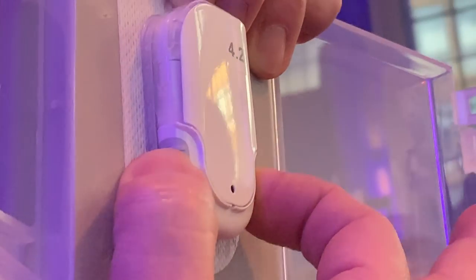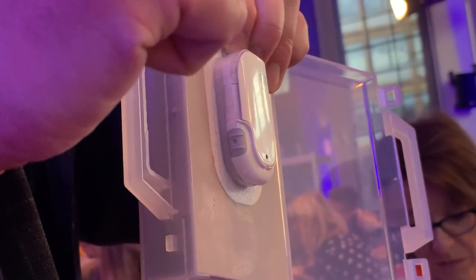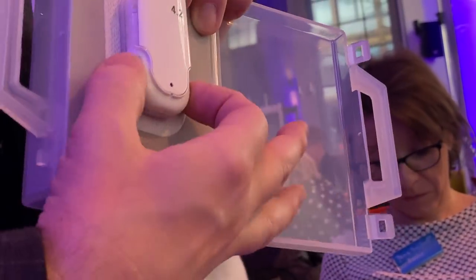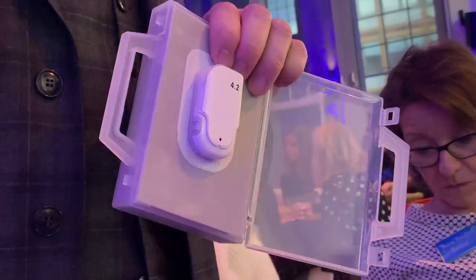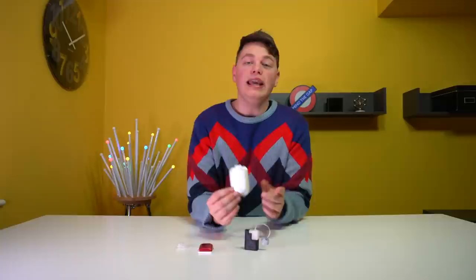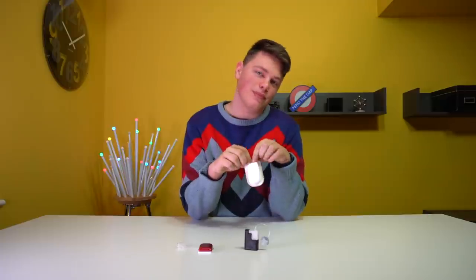I've got a clip showing how this works. I press and hold — that's the sign I can now program — and I go one, two, three, four, five. Now I wait. I press one more time, and this beeping tells me the bolus actually starts running. Since the pump delivers at two units per minute, the insulin is now in your body. A melody indicates that a bolus has been delivered on the Solo pump.